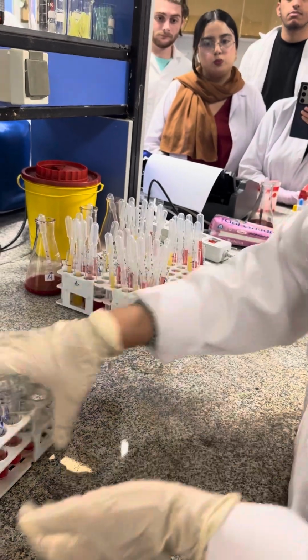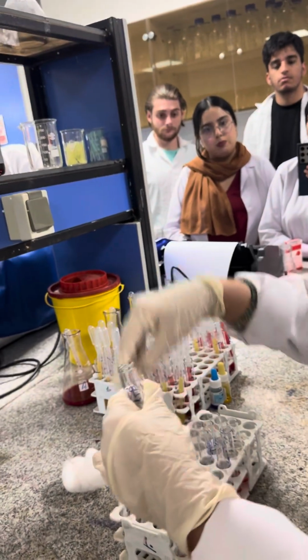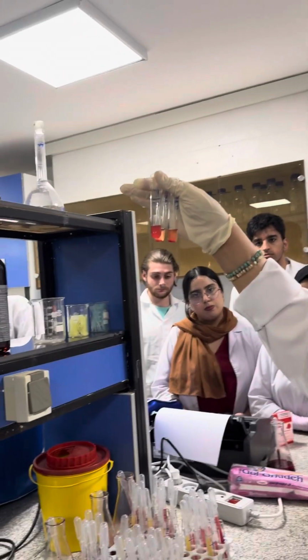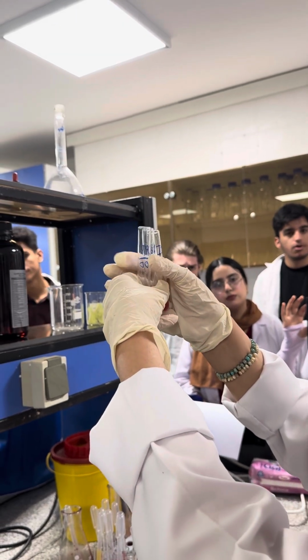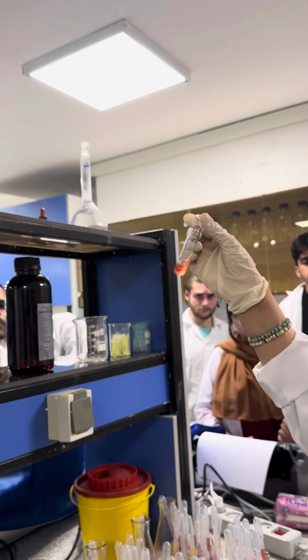Okay? For cross-match, you have 3 tests. We have done it already, and now it is prepared. You just read the conclusion, and after that, report for us which of them is negative and which of them is positive. Okay. Just please pay attention. At the beginning, you must shake it very slowly.